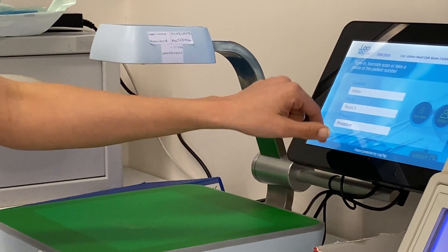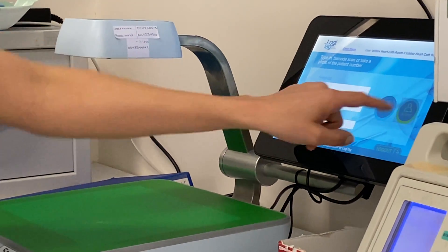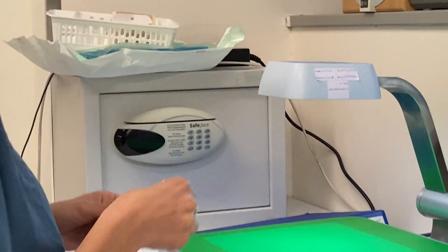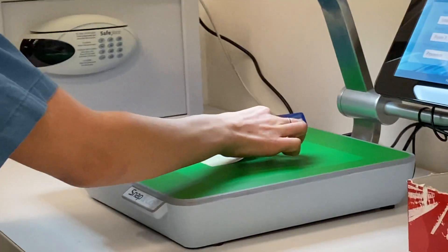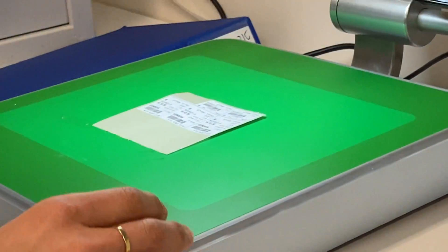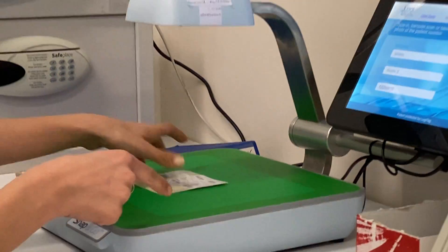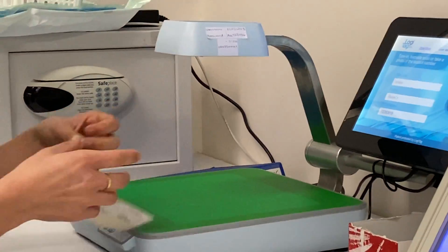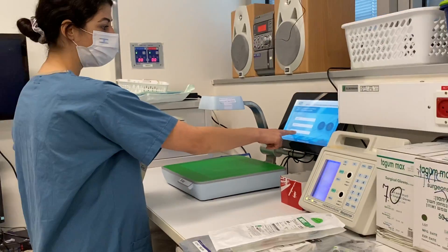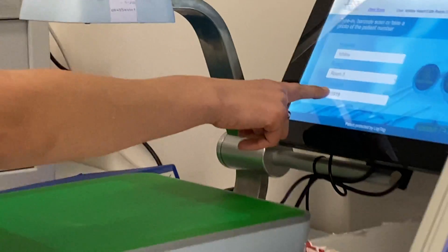Over here you have your patient. Click to scan the patient barcode — the patient sticker. Place it in the middle of the area, as close to the plus sign as possible. The green light means you can take it off. It captured the picture, and the number will show here on the screen.